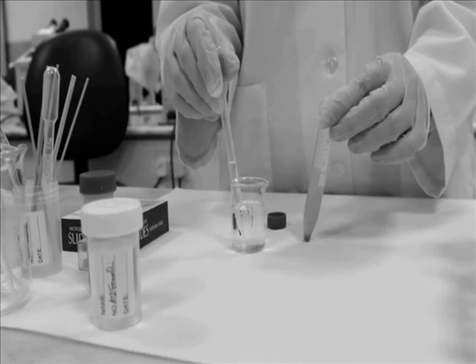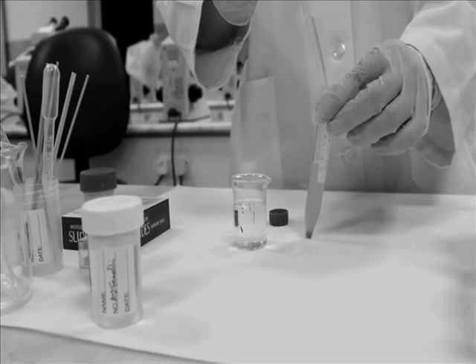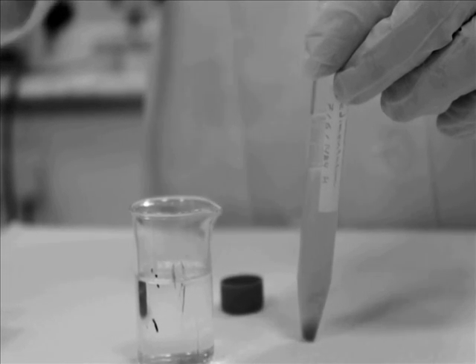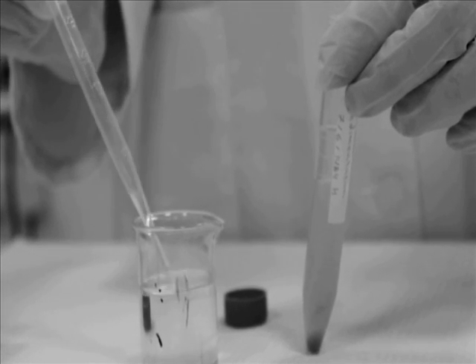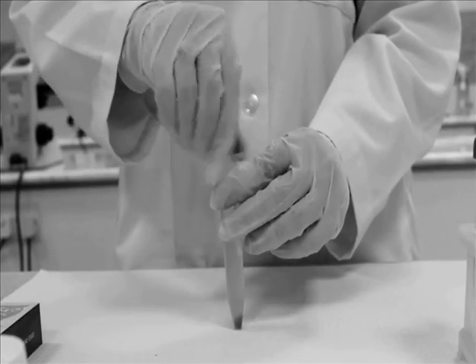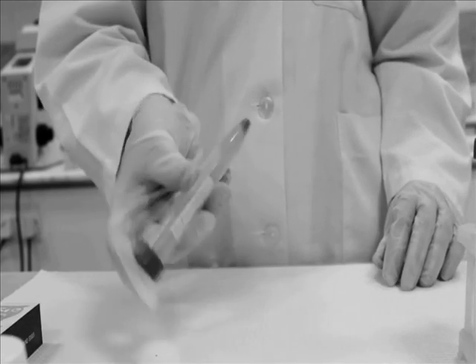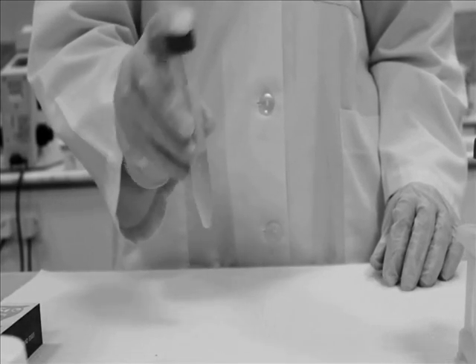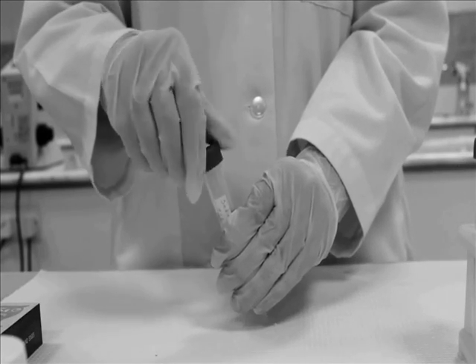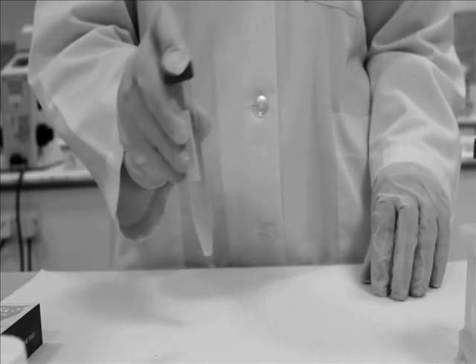Add 3 milliliters of ethyl acetate. Close the tube and mix it well. Then open the tube to let the vapor out, then close it quickly and mix again.